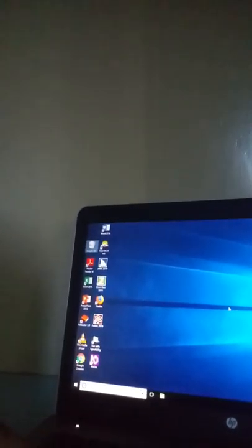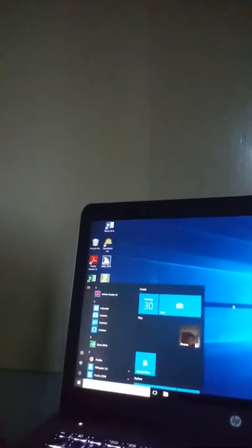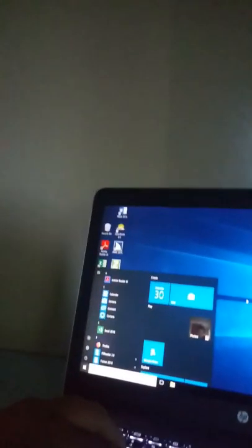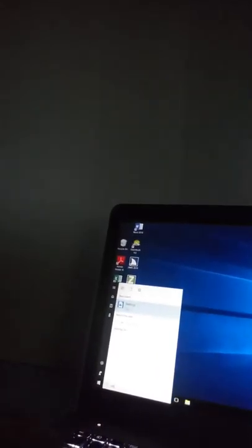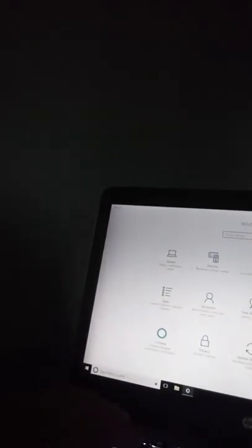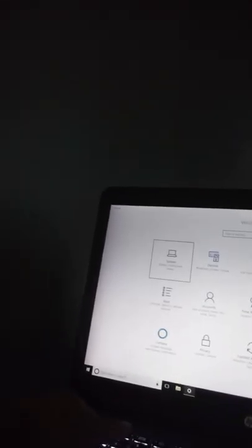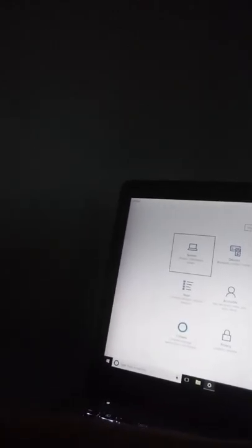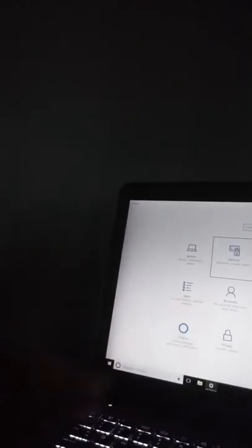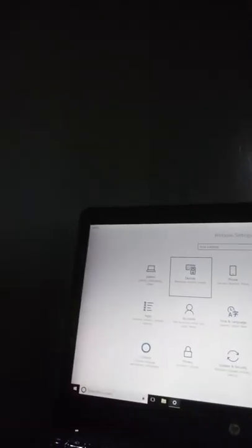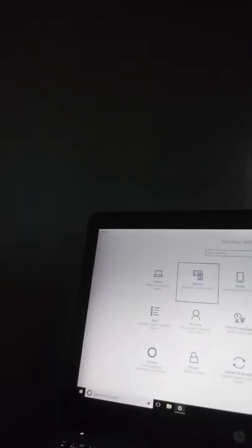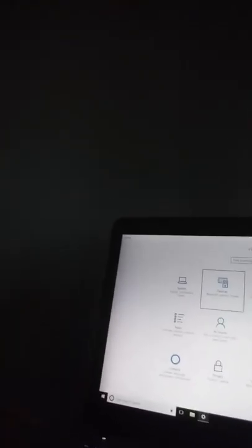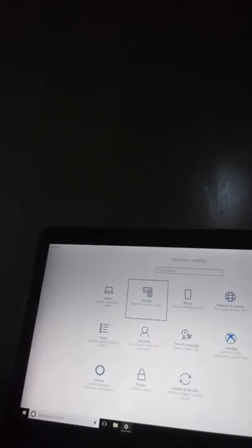That's the CueBraille side. Now we're going to jump on the laptop starting from the desktop. We're going to show you how to pair it with Bluetooth. I'm going to go to Cortana, the search box, type in settings, press enter. I'm going to press tab for the system and you want to look for devices.